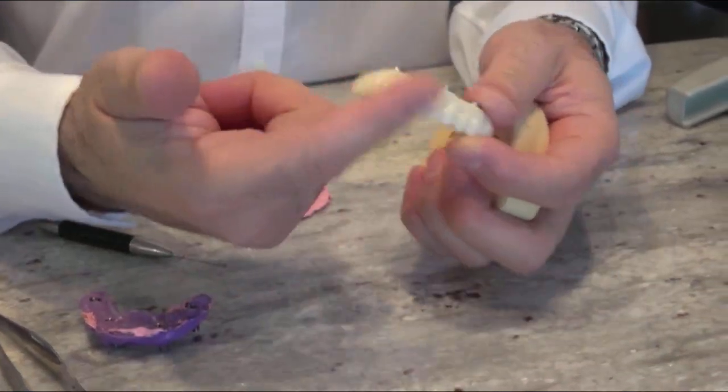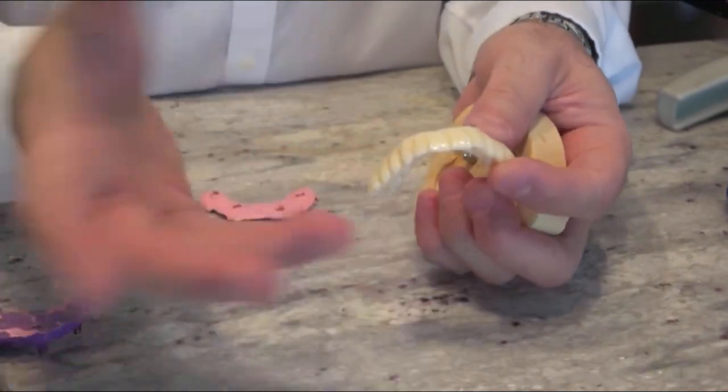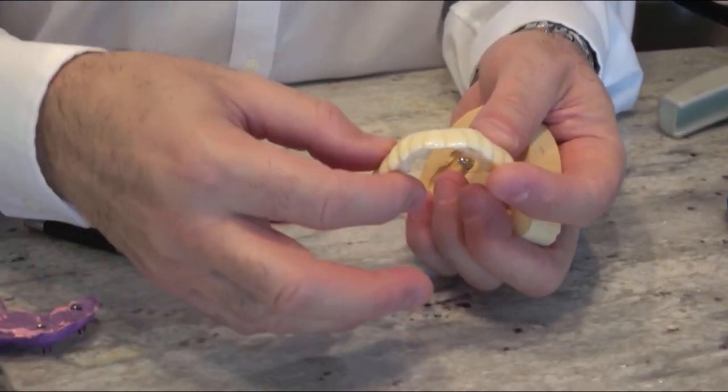Here's the printed PMMA. We designed the new smile based on what the patient likes and doesn't like from the conventional denture that they have or whatever they had in the mouth.